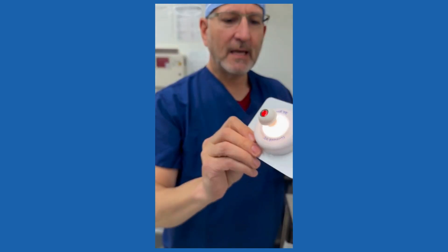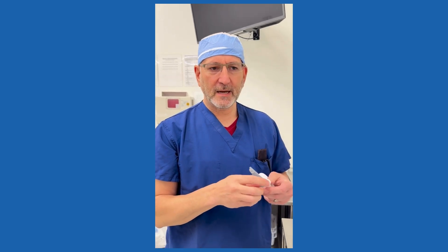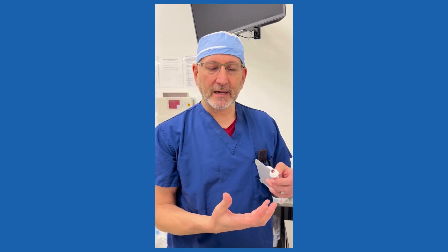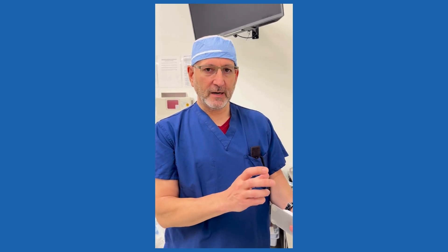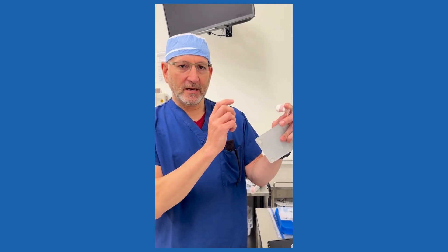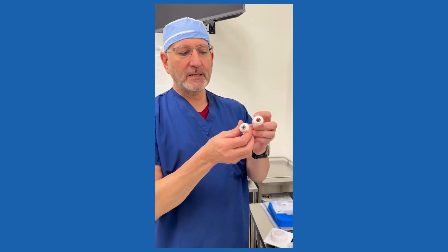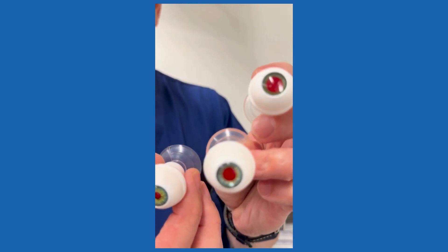This has really good optics. There's no lens in this eye, no true anterior chamber or corneal curvature — it's really the glass optic and then the retina at the back. So we get great visualization for indirect ophthalmoscopy. You can put it at the slit lamp and use like a 90 or whatever to see in the back. We are providing this in different pupil sizes: BIO7, BIO5, and BIO3, with the pupil size differences.